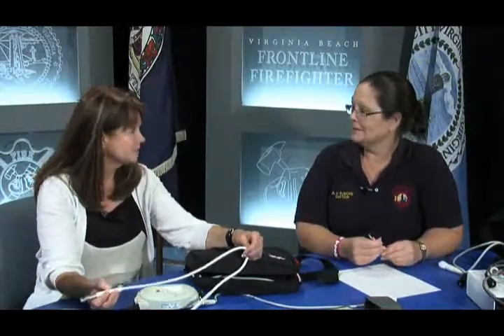In summary: the main things to be concerned about are obviously power — making sure it's plugged in; protecting that driveline; being very cautious about how we do CPR, or not doing CPR until you talk to us. And be alert that you can have a patient who is conscious, alert, and speaking to you with no pulse — and in V-tach or V-fib. Basically treat your patient, treat the symptoms, and call us. Thank you so much — this is very valuable information.